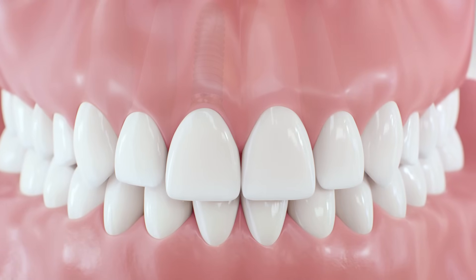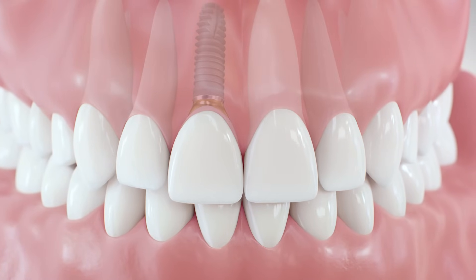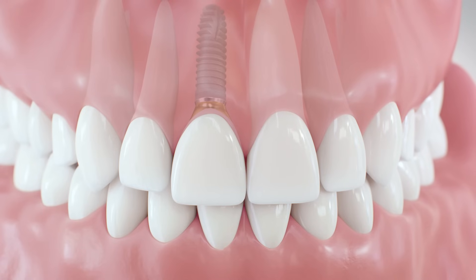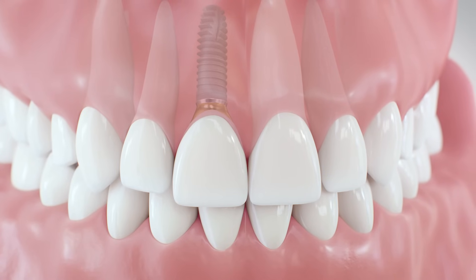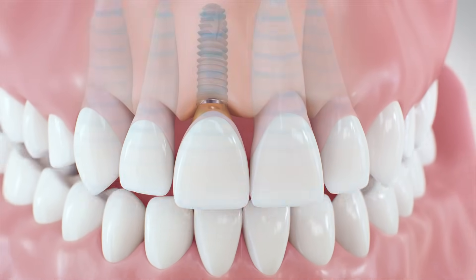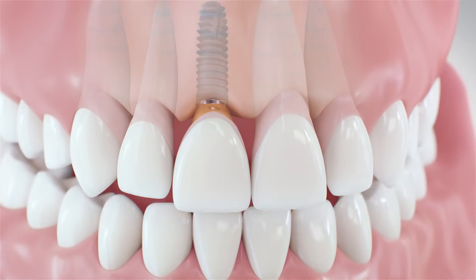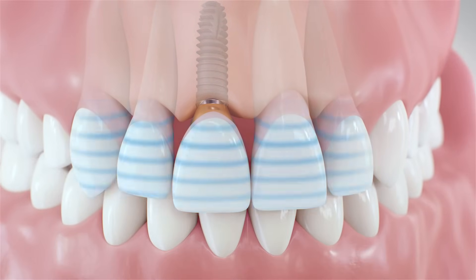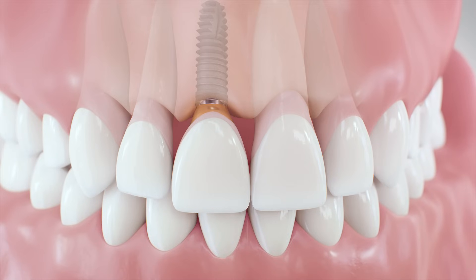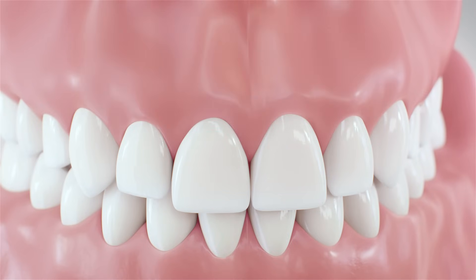A dental implant is the optimal solution for anyone who is missing one or more teeth. The implant feels and functions like your natural tooth root. Anchoring dental implants in the jawbone stimulates bone tissue and gums, ensuring an attractive, long-lasting, aesthetic result.